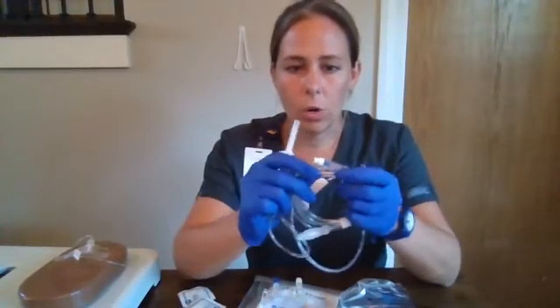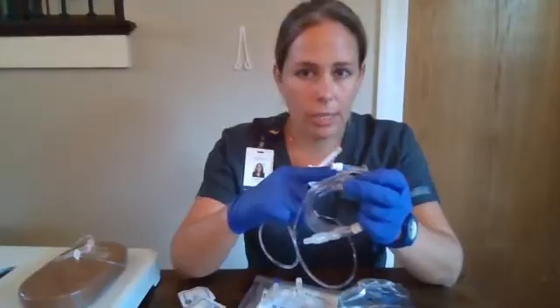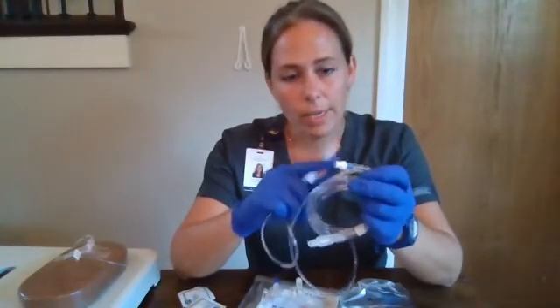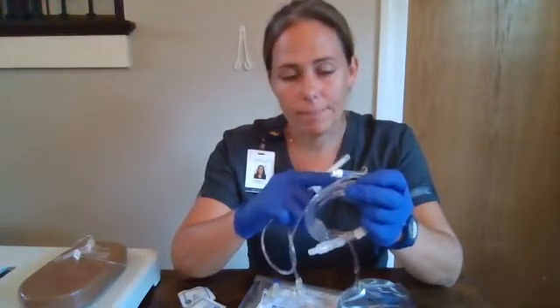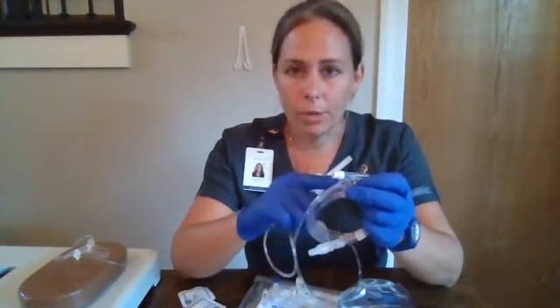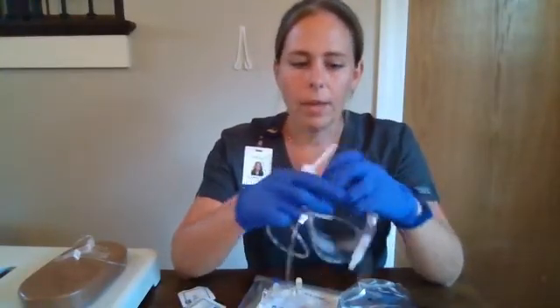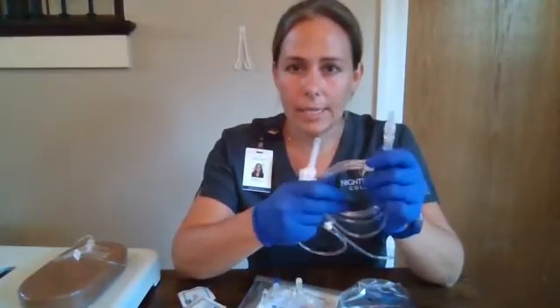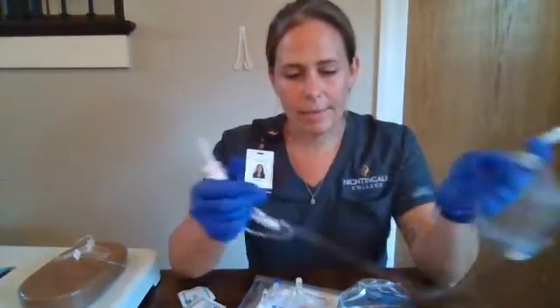We also have our Y-site. This is for medication administration via IV bolus or piggyback secondary infusion. Anytime we utilize this port, we need to make sure that our medications are compatible. And then finally, we have our adapter end — this is the end that goes into the patient's IV site.